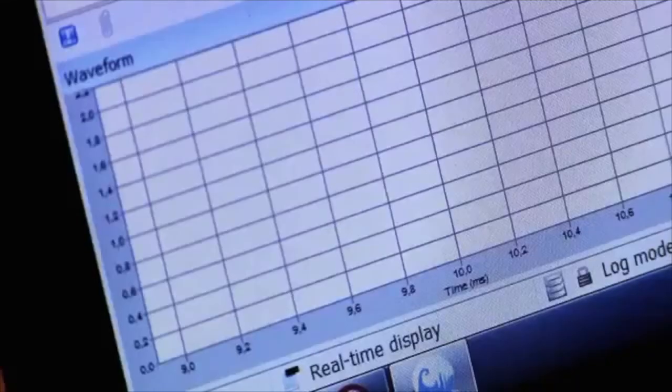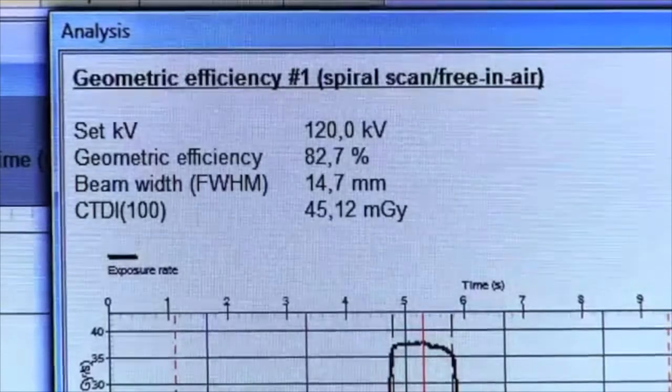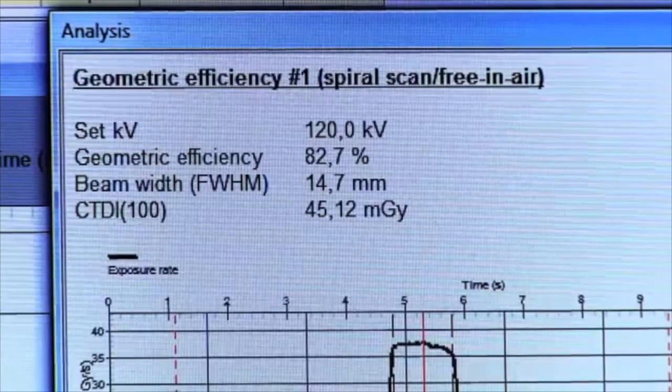Once the measurement process is complete, you will have a true picture of the X-ray beam and can study the CT dose index 100, the full width at half maximum, and the geometric efficiency.